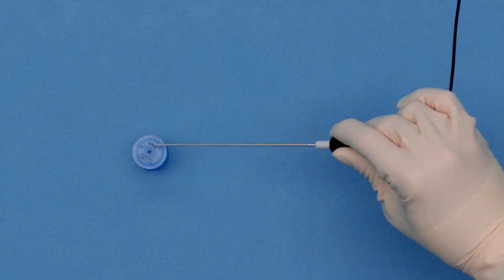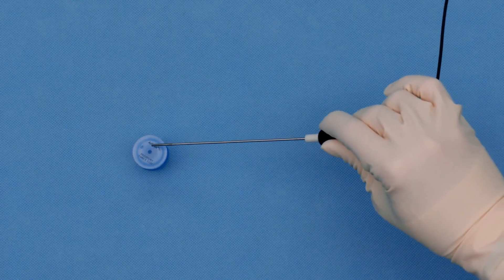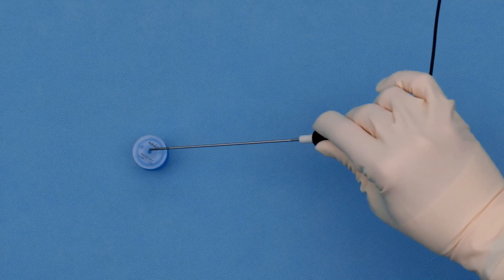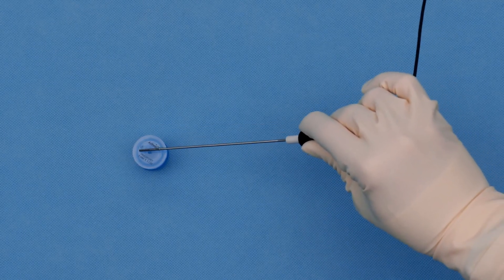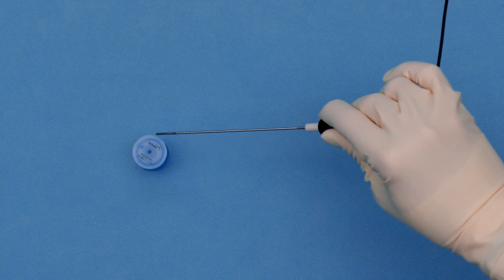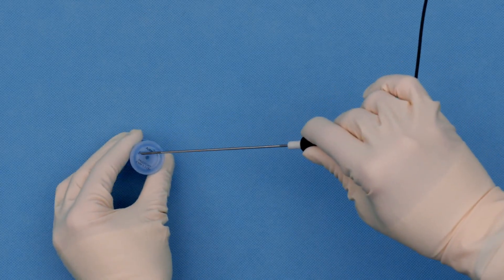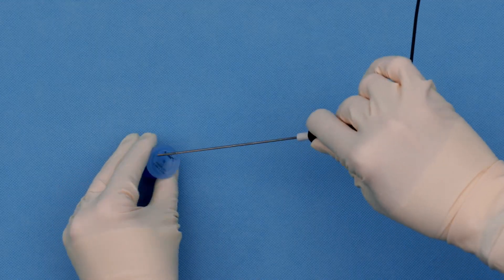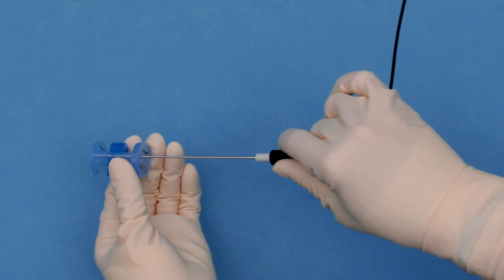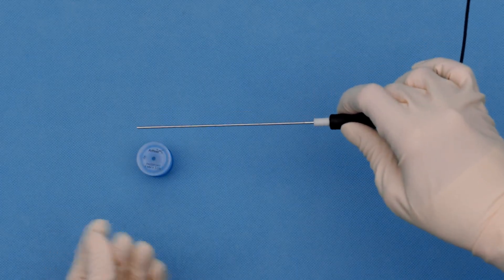Here is the new Auxiliary Lumen Passport Cannula. This is the standard 8x3 passport cannula that we all know and love. You have that central standard lumen that you can use for all the typical procedures. And you can see on the side here where there's this tiny black ring — that's the auxiliary lumen where you can fit all of the two-millimeter nano instruments, including the Nano Needle camera. That's very helpful if you need an accessory portal for suture management. You can also use it for additional viewing if you have an area of the knee or shoulder that you're having trouble getting to.